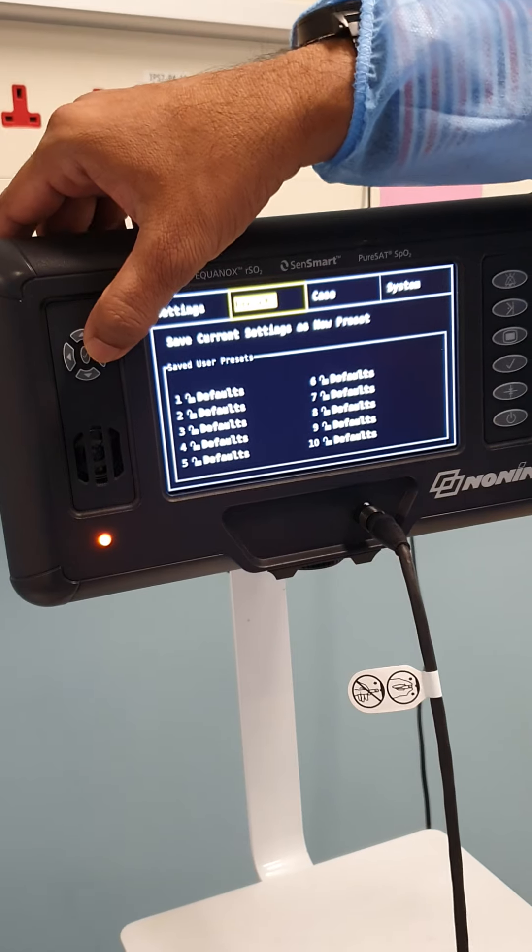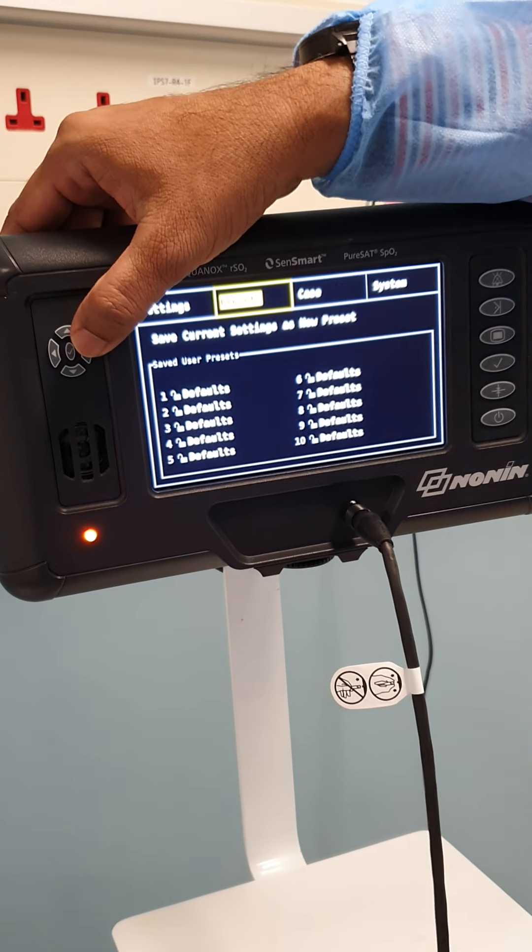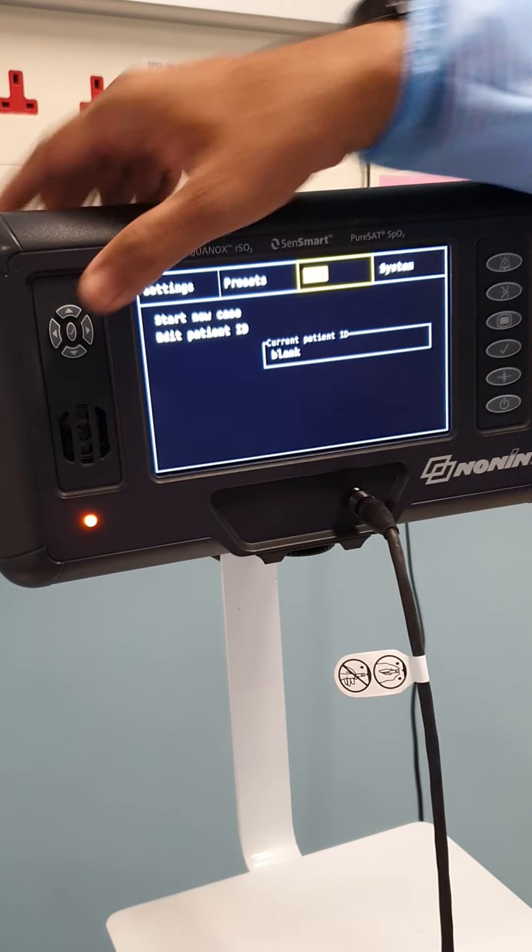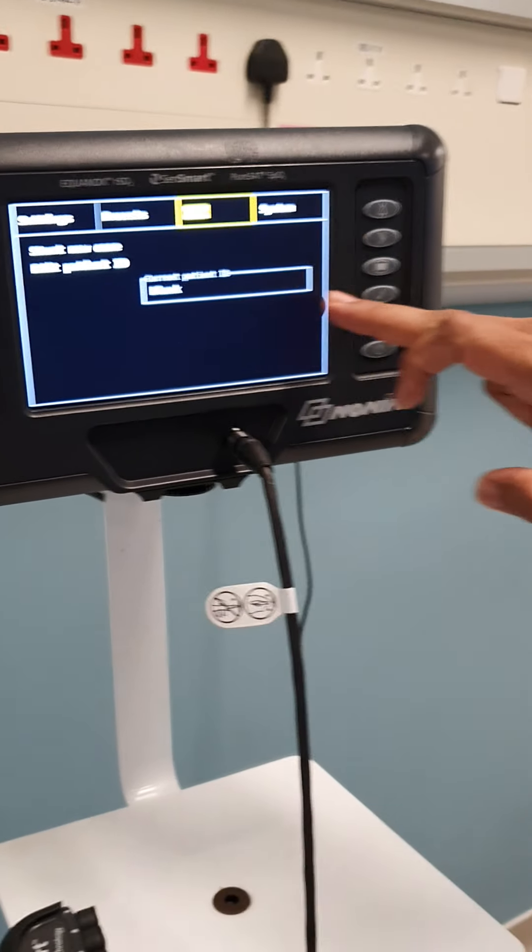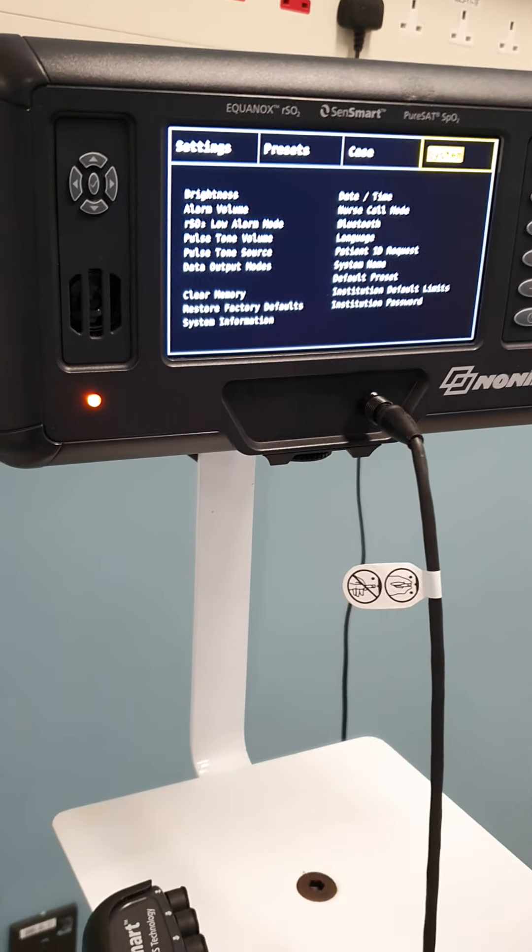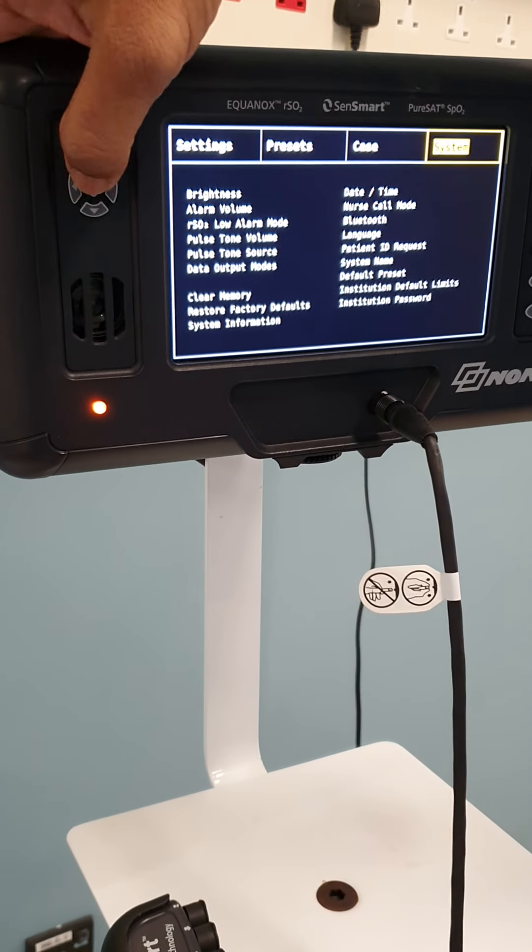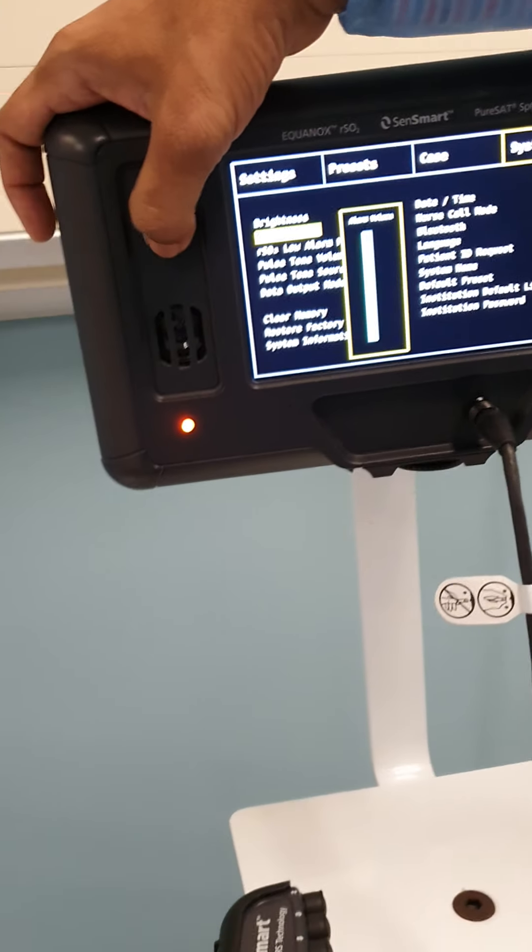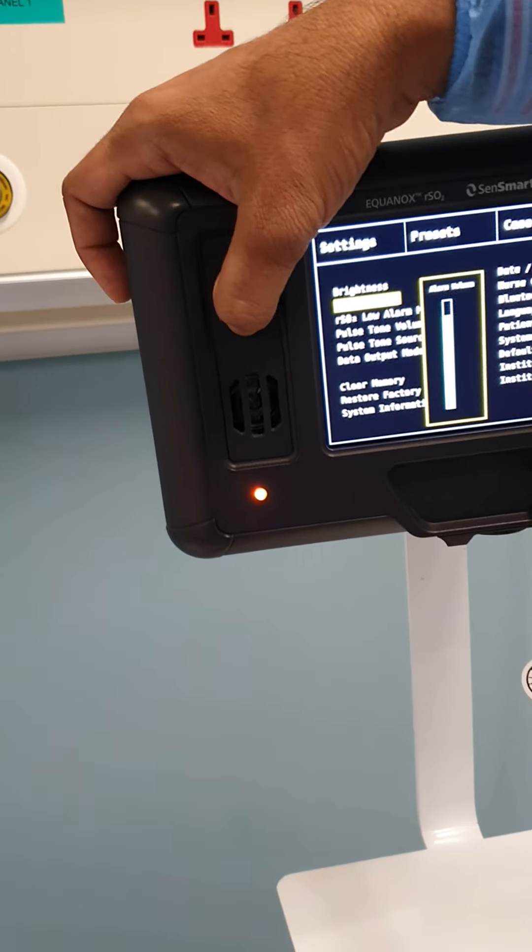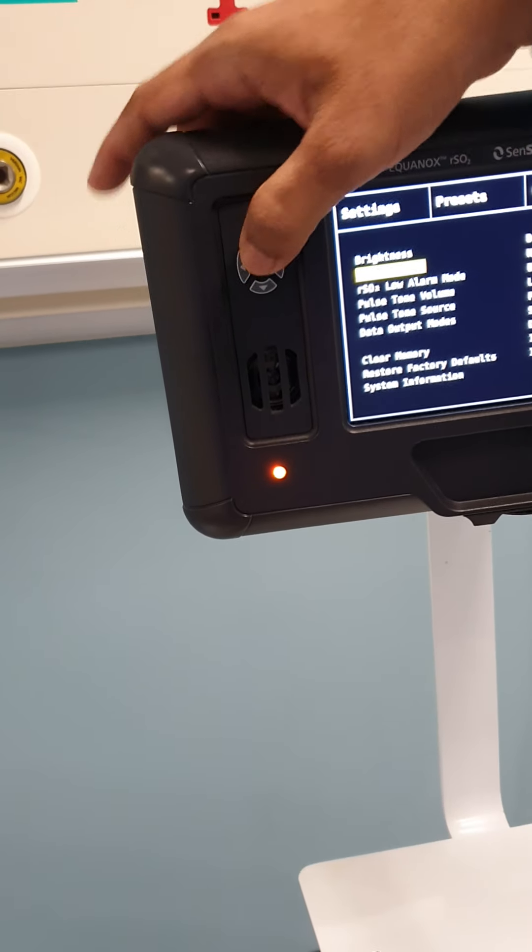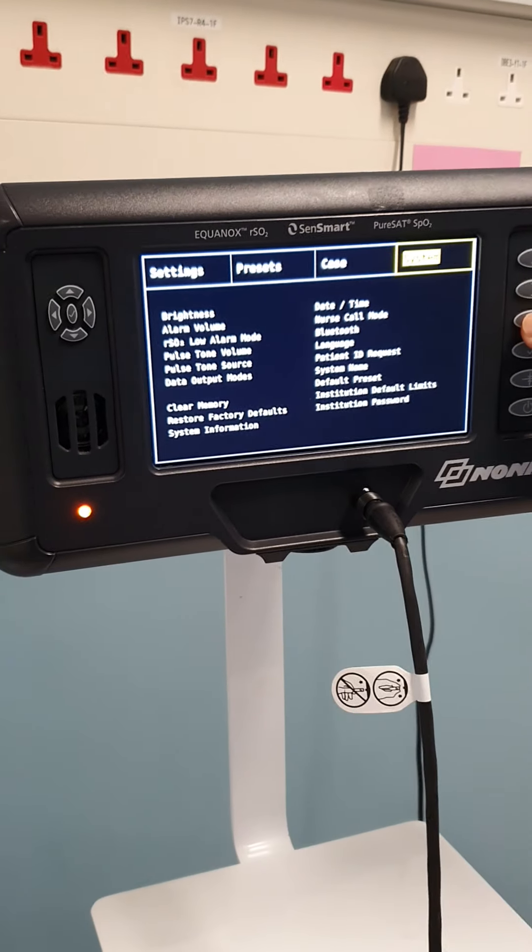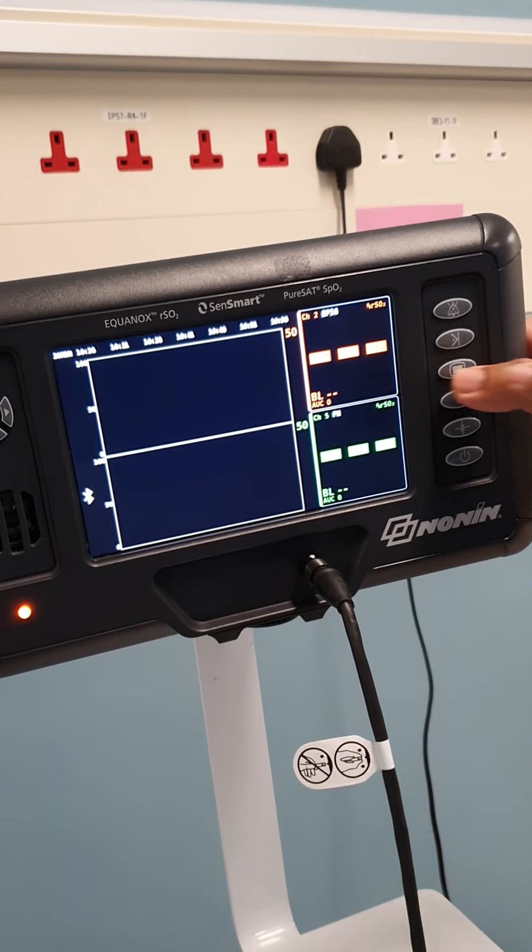Some things about presets what I said - we can also define the presets initially when the doctor wants. You can set the settings of the machine. In case you have some patient ID or something, you can define the patient ID also. And this is for the system. Mostly this is for the biomedical and sometimes for you also. Like if you want to lower the volume - sometimes you don't need higher volume - you can adjust the volume and other things. Let's go back over here.